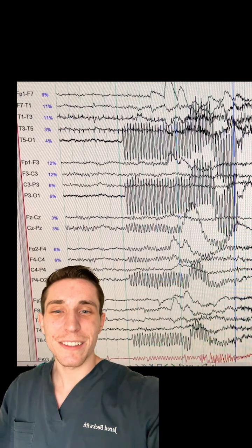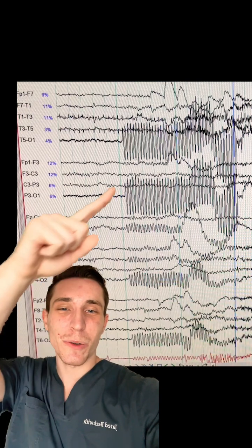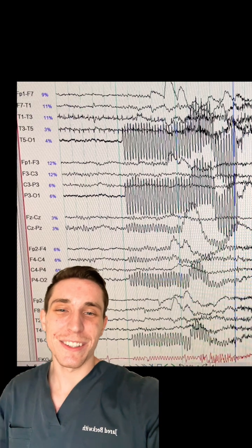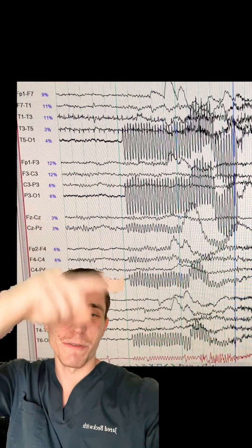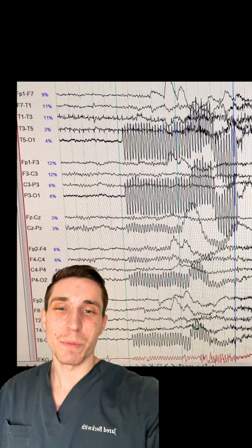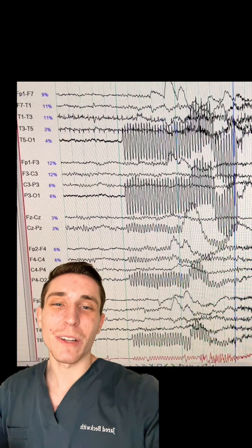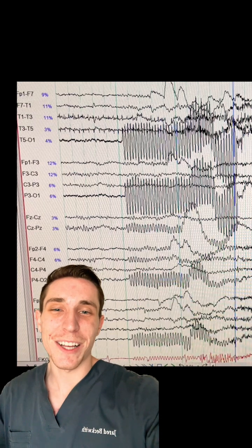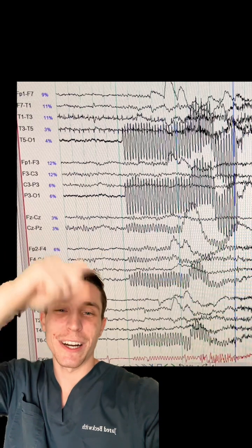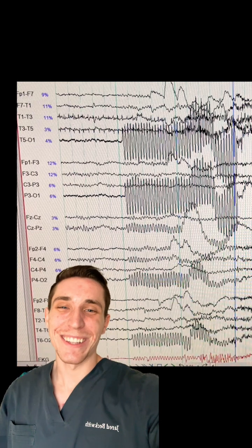Well, a patient actually pulled a phone out shortly after this on the video, and you could see that this was just the phone ring from a phone that was plugged into the wall, kind of like an old house phone in the hospital, and it was not coming from the brain. It was actually just a phone ring, guys.